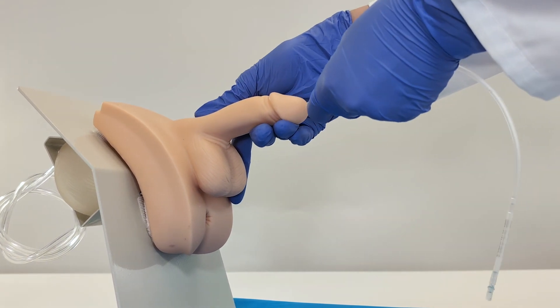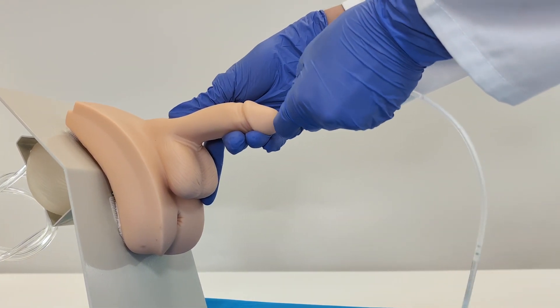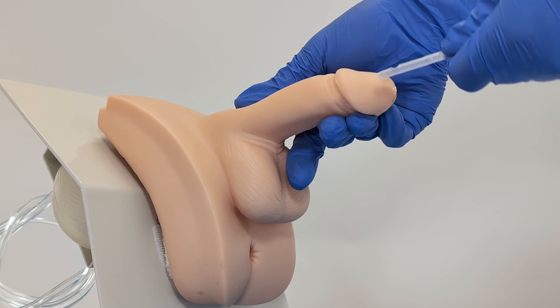The male model includes an adjustable penile angle, crucial for tactile realism during practice sessions.